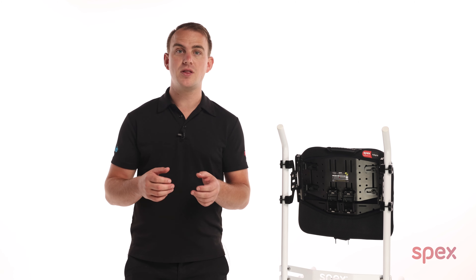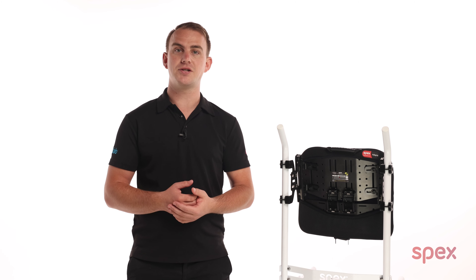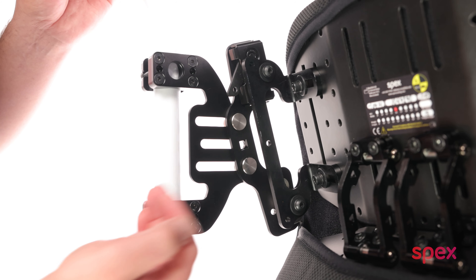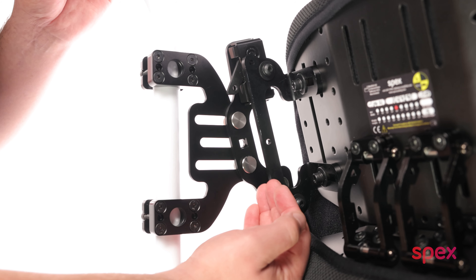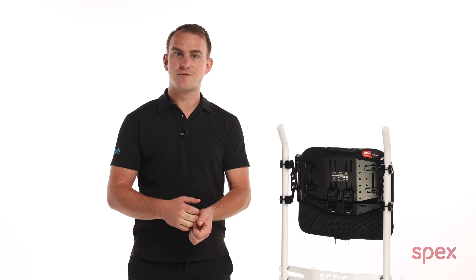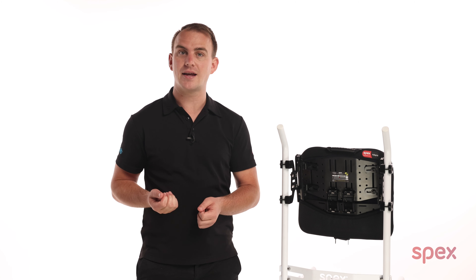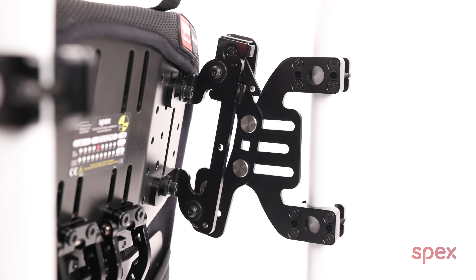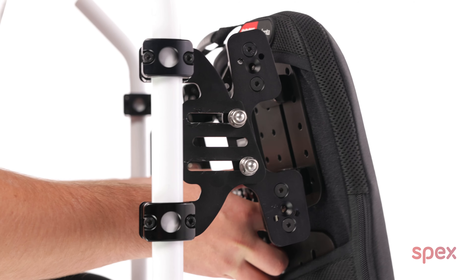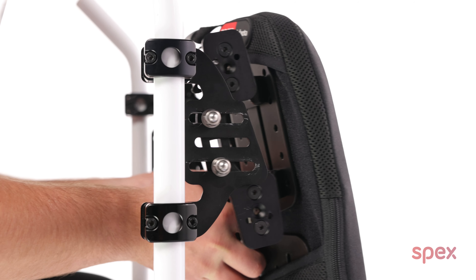Because I'll be putting the back support into a lordotic configuration, I would typically want the central section to be a bit further forward from the wheelchair canes so that we have room for the bottom section to hinge back. So I've chosen the forward dual mount hardware, as this can extend forward a bit more than the standard dual mount.